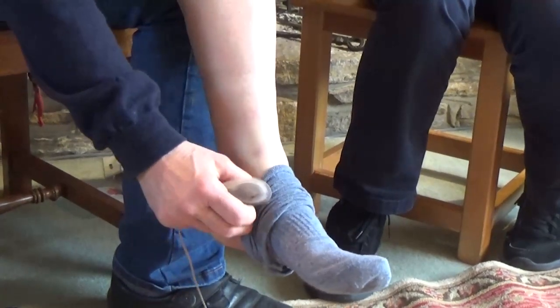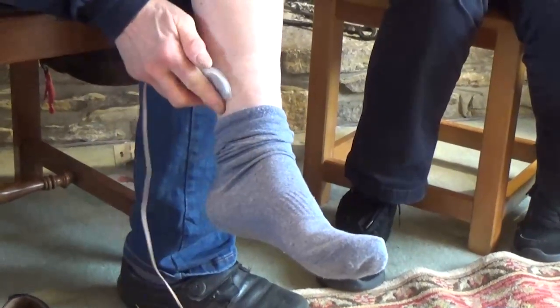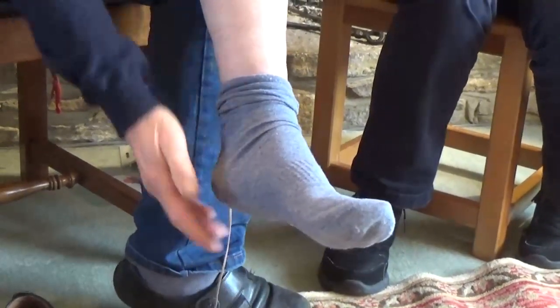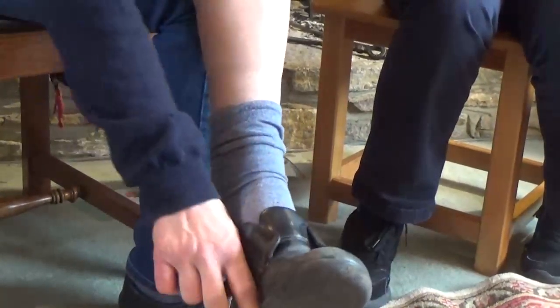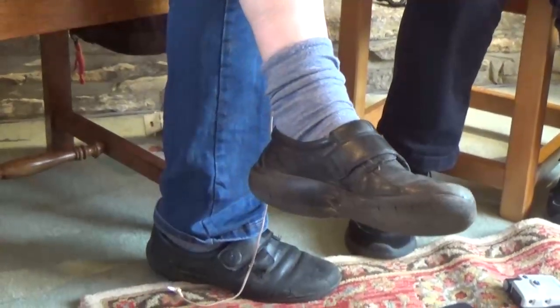I make sure I've got a fairly tight, well-fitting sock, pull it up and then just roll it back down, easing it under here like that. I can push it in easily with my thumb and fingers to the position under my heel where I want it. Then I put my shoe on and it stays in place all day. The advantage for me is I can change my shoes without worrying about the switch — it stays put in my sock and I can put my outdoor boots on, my trainers, my going-to-town shoes, whatever I want. I just change my shoes like you would.